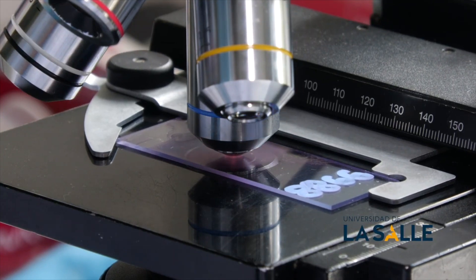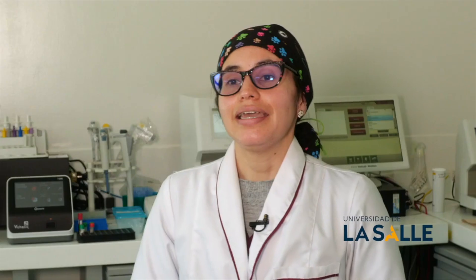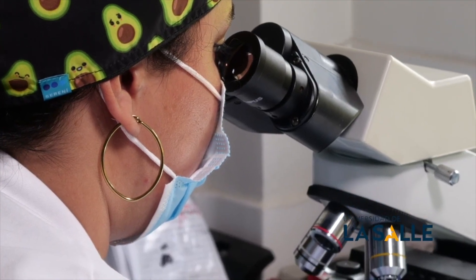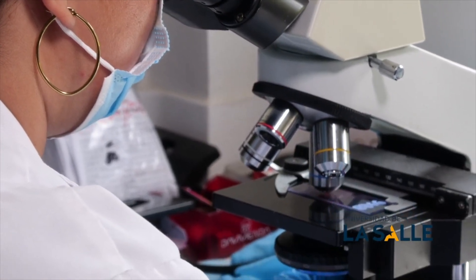Additionally, in the veterinary clinical laboratory of La Salle University we have the support of the microbiology and parasitology areas. In these very specialized areas we focus on the search for specific microorganisms that allow us to better control our patients and thus contribute to the control of our habitat and that of our patients.